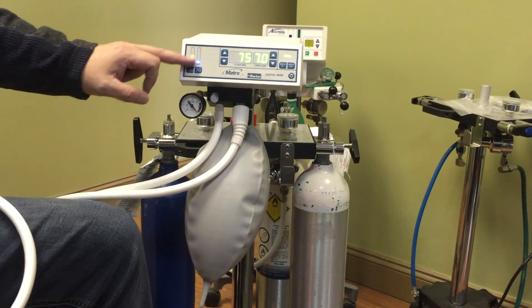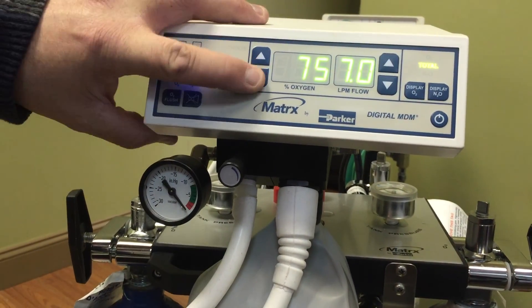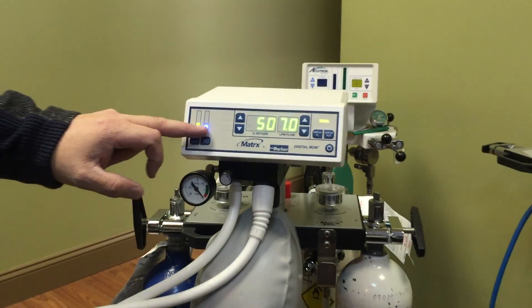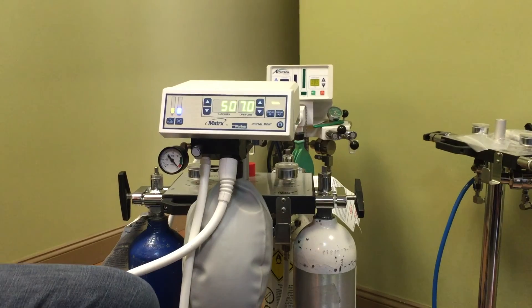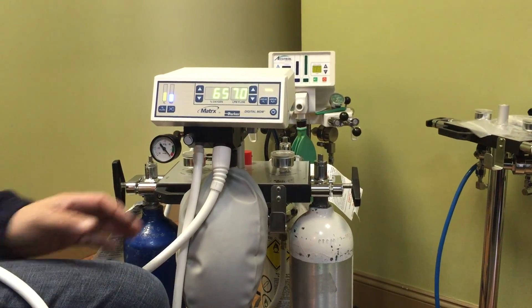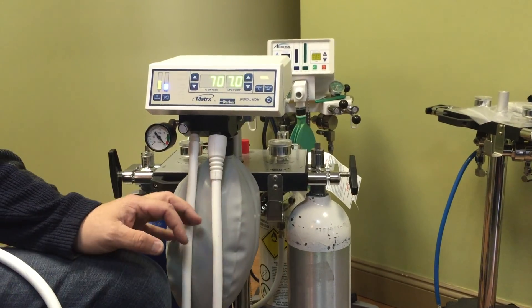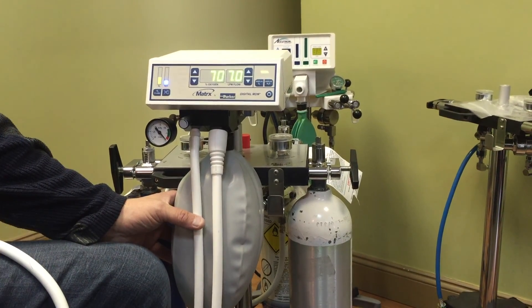Now, if you can see, we have a nice little graph here indicating the volumes. You'll see that oxygen is much lower. But if I bring this down to 50% oxygen, that means 3.5 liters nitrous and 3.5 liters of oxygen — both of these bars are basically going to equal themselves out. So once this is set up, keep in mind as you're titrating your percentages, you're basically always one step behind. The reason is because we're actually mixing the gases into this breathing bag and the patient is breathing from this bag.